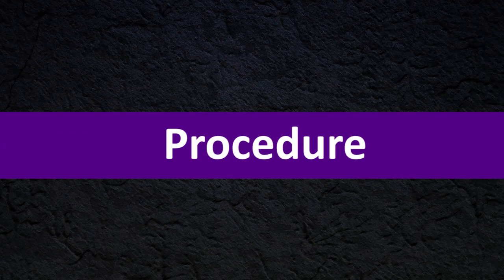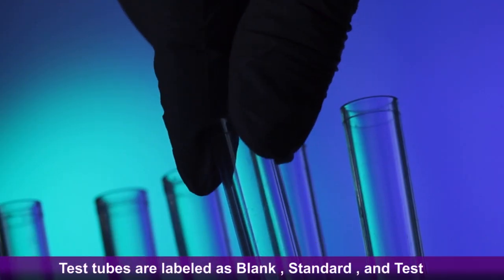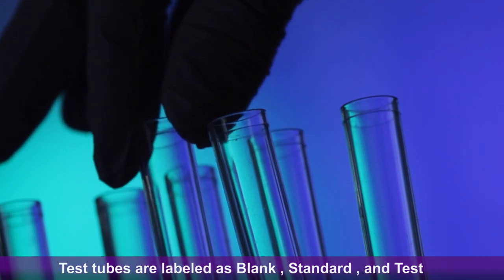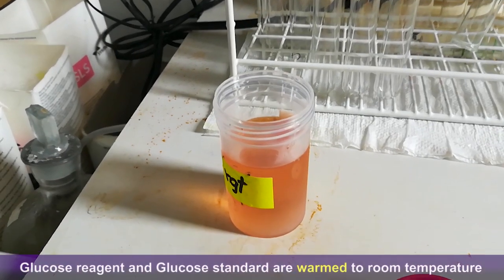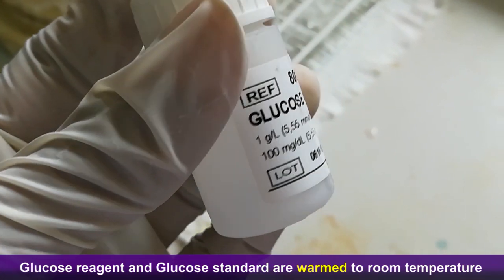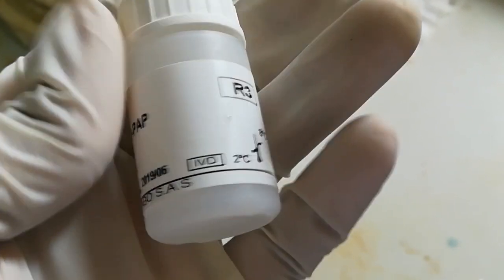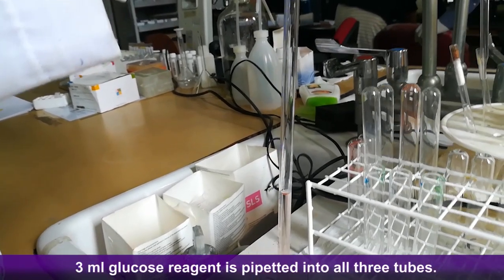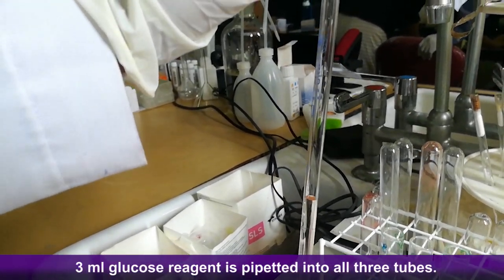Procedure: Test tubes are labeled as blank, standard, and test. Glucose reagent and glucose standard are warmed to room temperature before use. Then 3 ml of glucose reagent is pipetted into all three tubes.